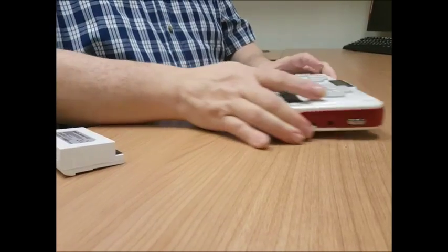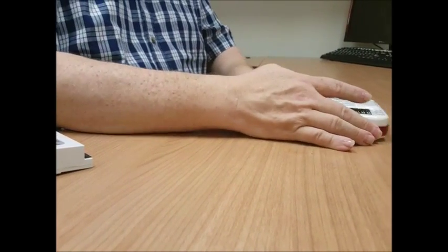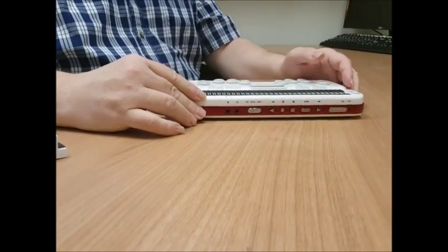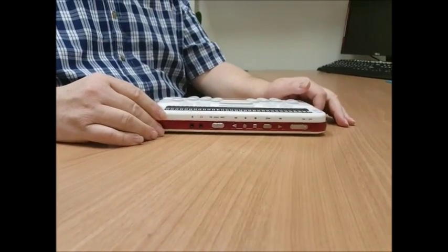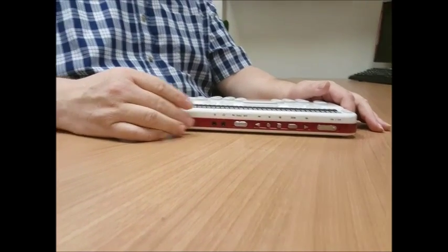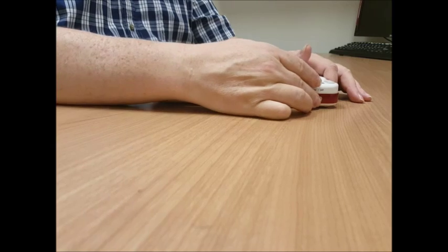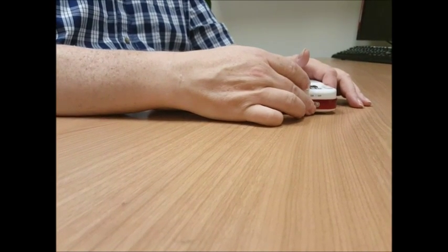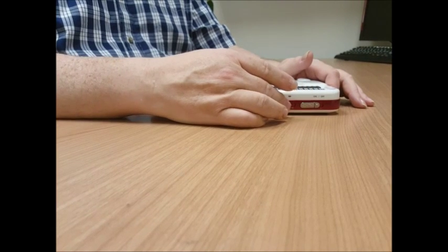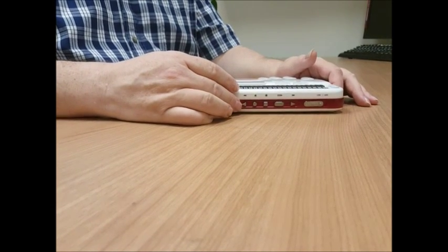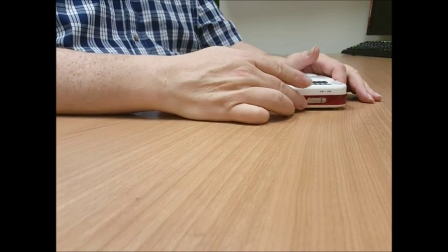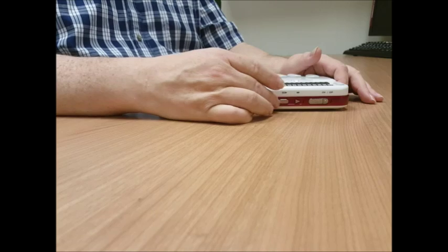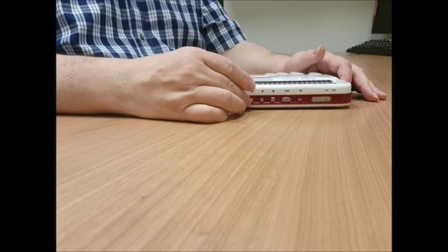Now I'm turning the unit around so that you can see it. So now on the very front panel, which would be on the right hand side of the front panel, is the power switch. It's a slide switch. Hold it over to turn it on, and let it go, and do the same thing to turn it off. Then we have five media buttons. From right to left, they are forward, then play, then stop, record, and then rewind.